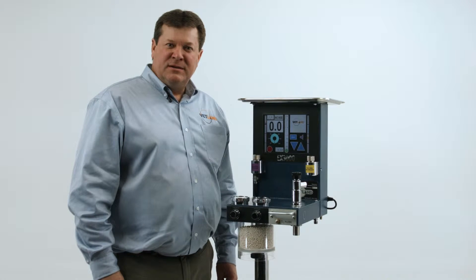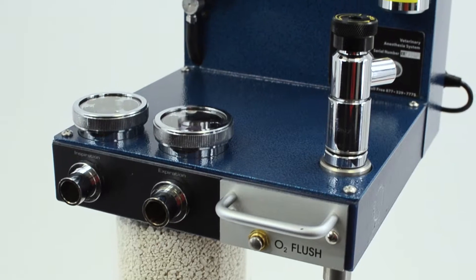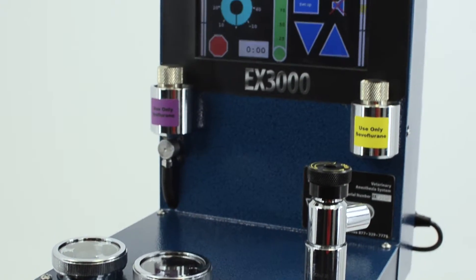Hi, I'm Brad Rump. I'm president and owner of Vetland Medical. Today we're going to talk about our EX3000 electronic anesthesia system.